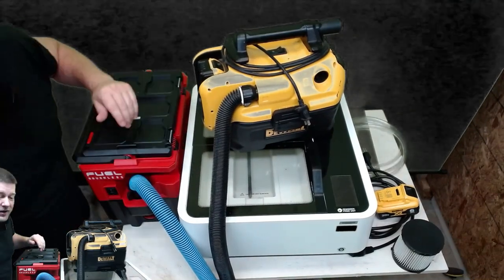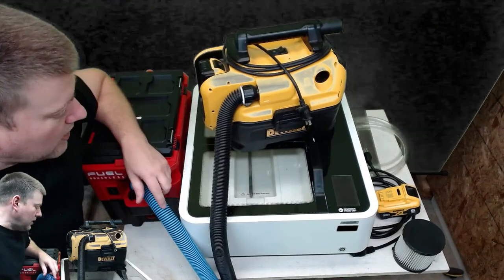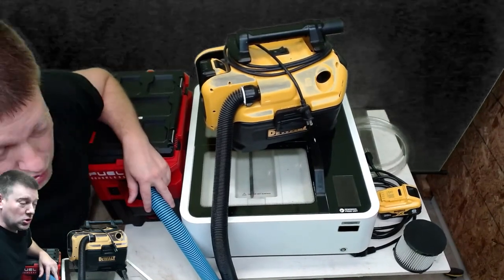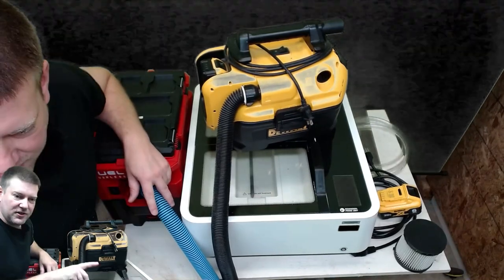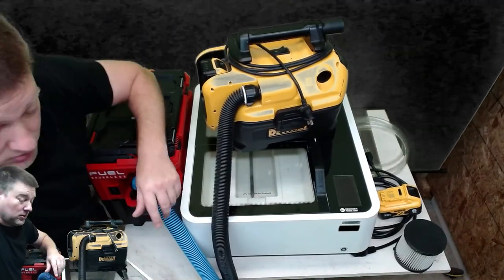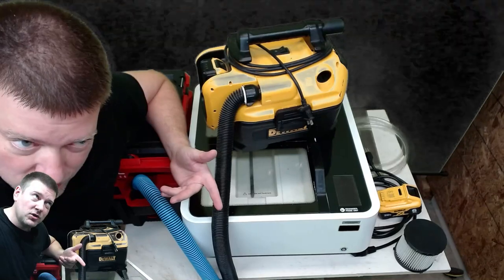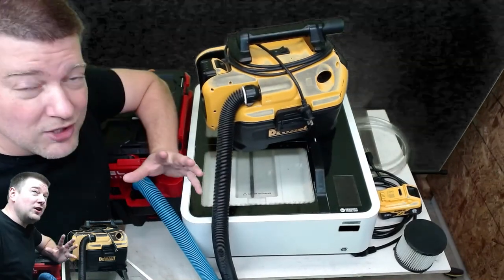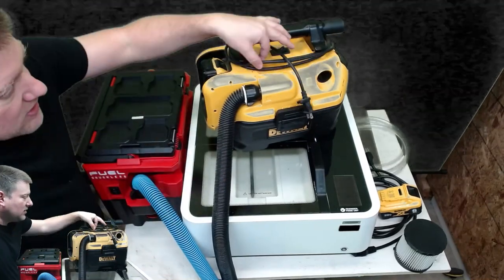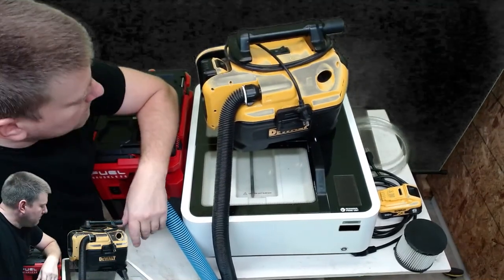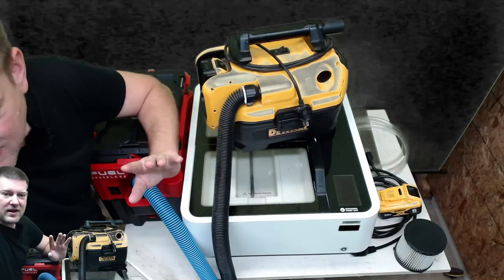When you're in the field, you're usually not around a place where there's a plug. If you're in a central core underneath a sterilizer cleaning out drain pans, around a treadmill that plugs into 220 volt, you usually don't have the ability to plug into 120 volt locally, but battery-powered is absolutely essential.